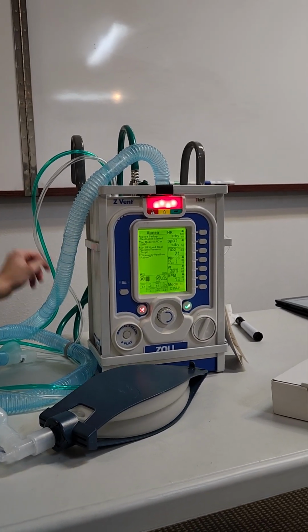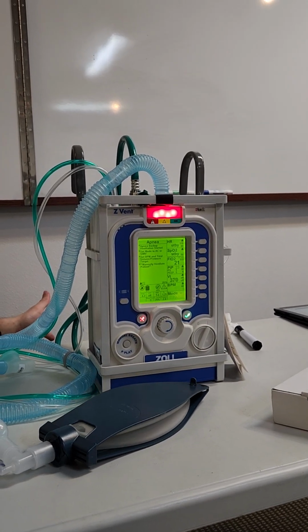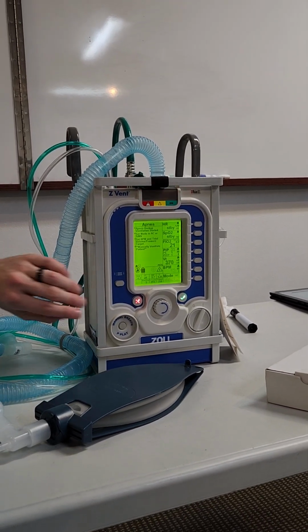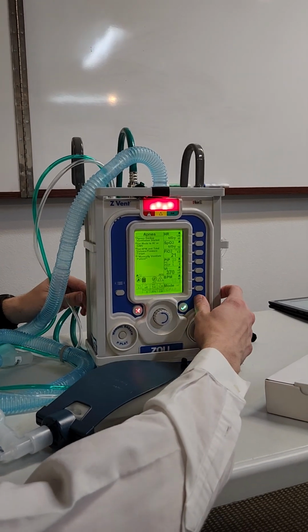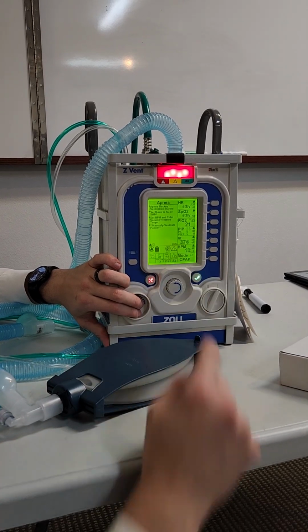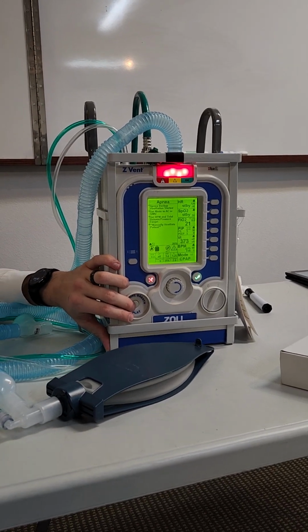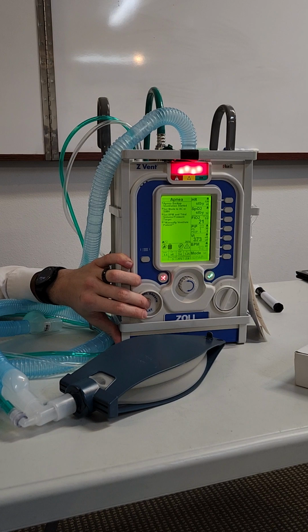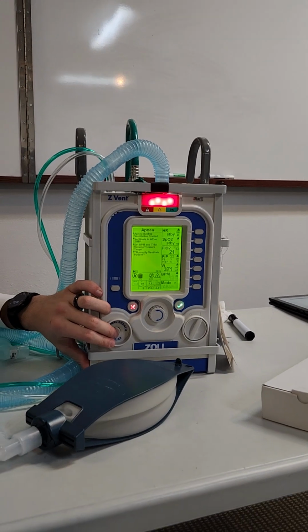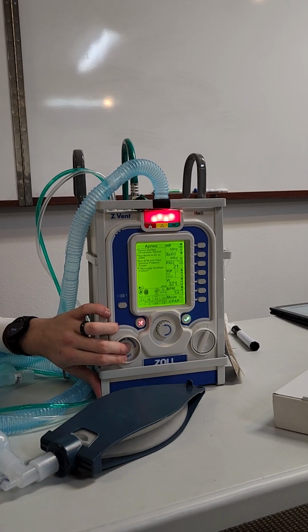Okay, what could be wrong? Patient's not breathing. That's why it has to do it. Maybe the circuit disconnected. Right? If it's not connected, then it's not going to be detecting that patient breathing at all. If we want, did it increase the patient's respiratory rate? Now, it goes to 12. Why did it go to 12? Because 12 is typically the lowest breaths per minute that you can have for living, right? Okay, right, but you had it set at 7. Yeah, it was set to alarm below 4. So you usually want to set it up at like 10. So if anybody's breathing less than 10, then it would kick into 12.